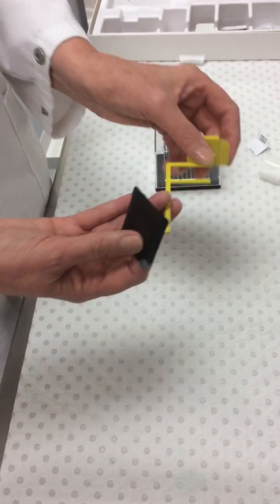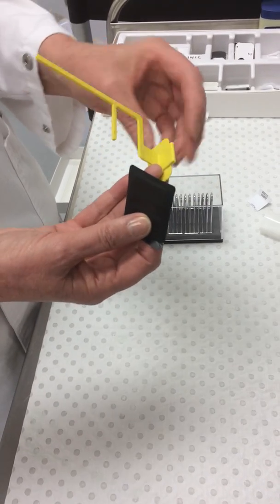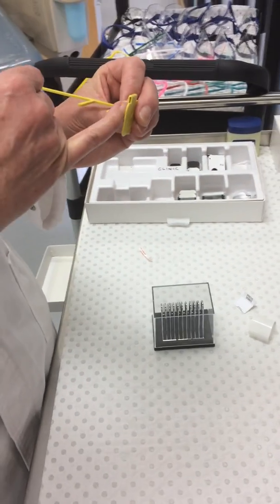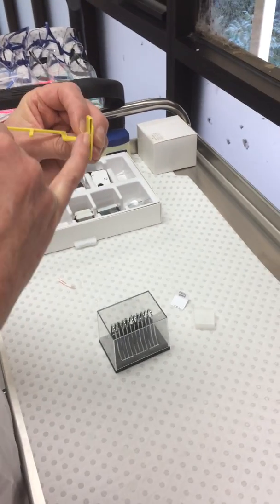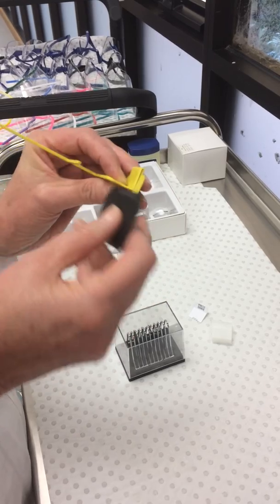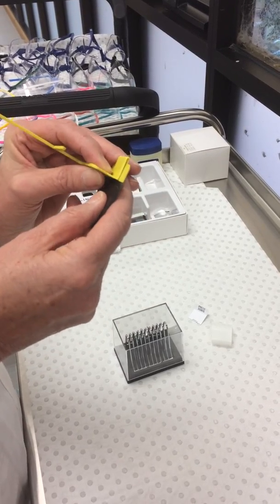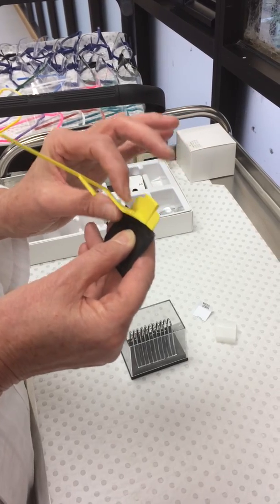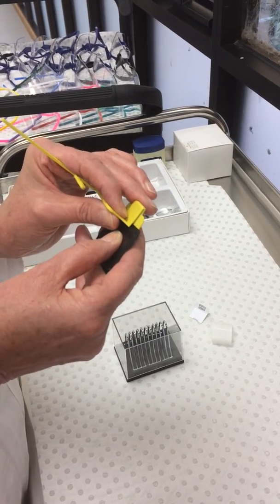And for the quick bite, as you can see it's got a holder at this end. It has a narrow opening that allows you for placing the phosphor plate. Now you need to take care when using these quick bites because the plastic is hard and it's also quite fragile.